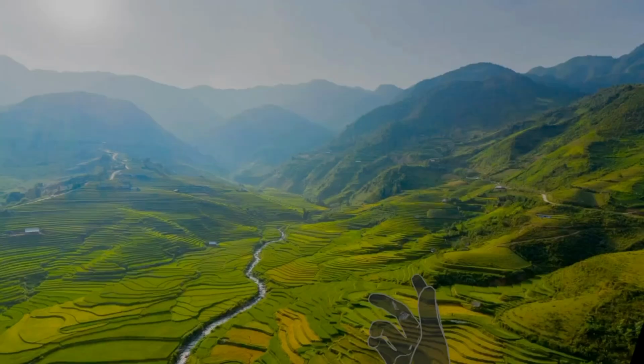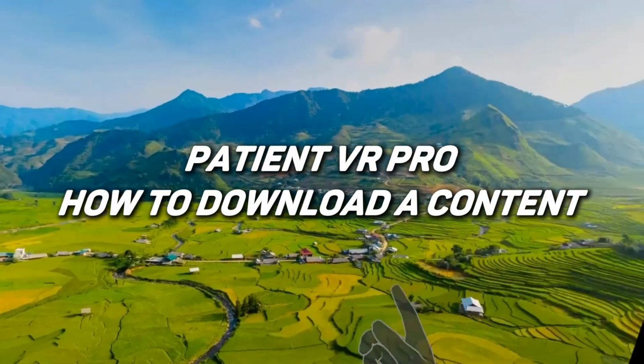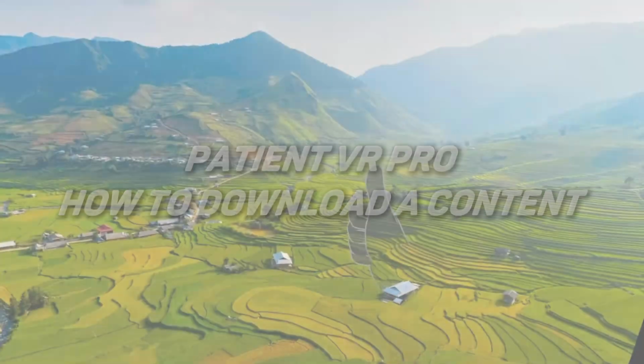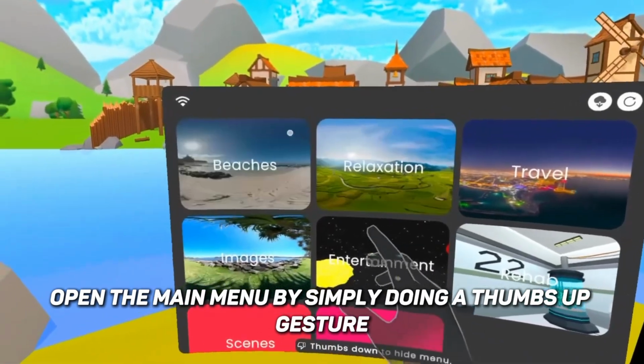Welcome to PatientVR Pro. Today, we're going to show you how to download content directly inside the PatientVR Pro headset. First, open the main menu by simply doing a thumbs up gesture.